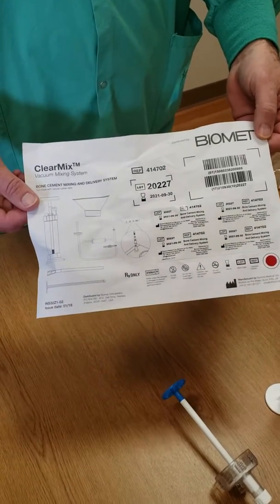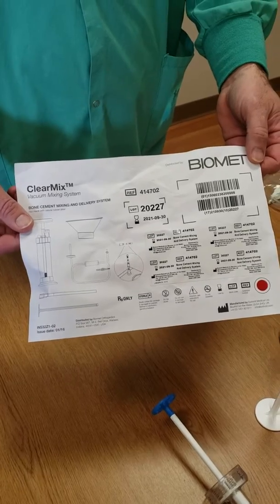This is the new Zimmer Biomet ClearMix system for hemi hips and total hips.